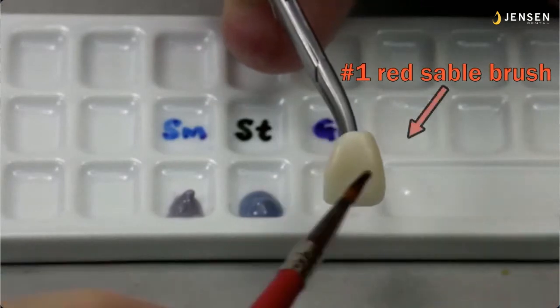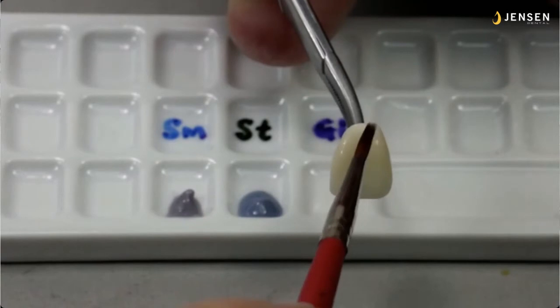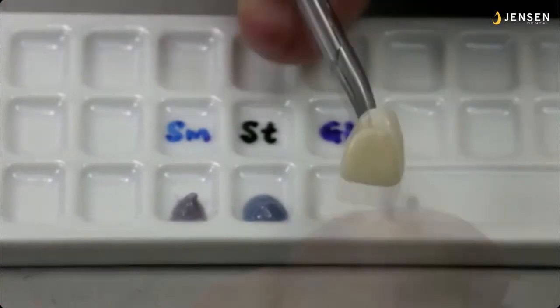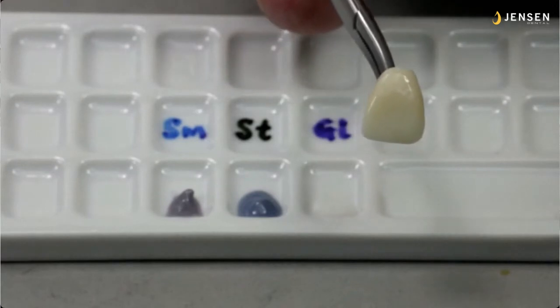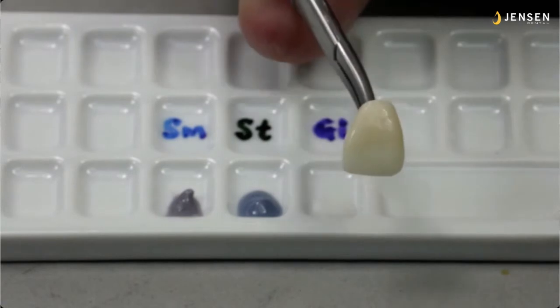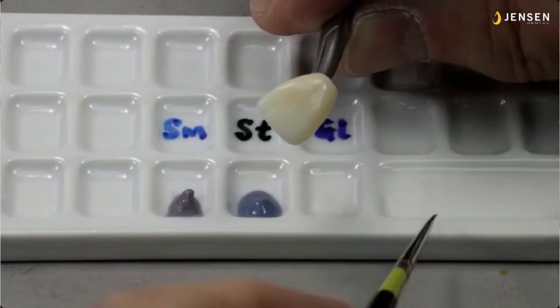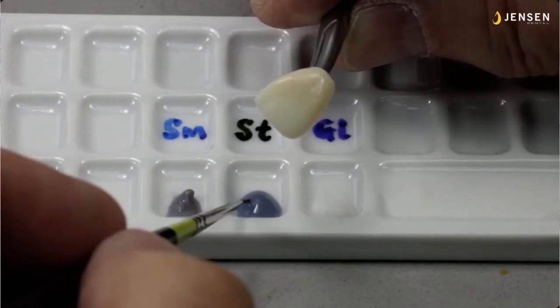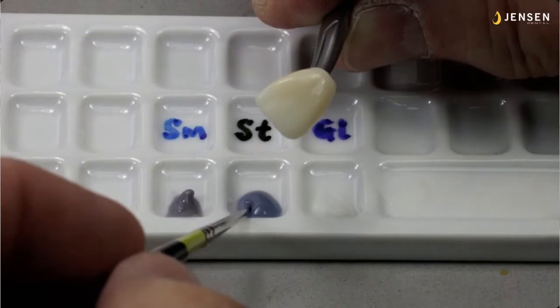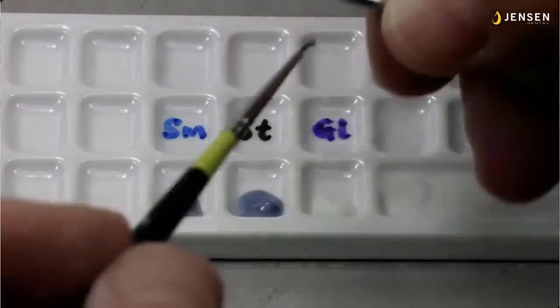And here's my number one red sable brush, which I love to use for applying the paste glaze. Like I said, this stuff is a lot like the consistency of nail polish. So that number one sable brush is about the diameter and about the length of a nail polish applicator brush. So when you saw me apply it there, I had my brush at an angle. Now you'll see me do it later in this video, where I have it at a much more parallel angle. So I'm going to use some storm for that translucent window above the incisal edge.